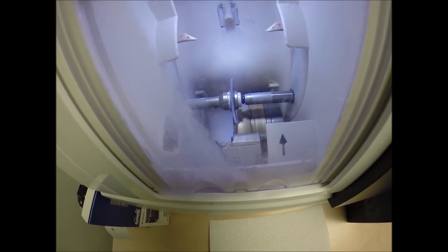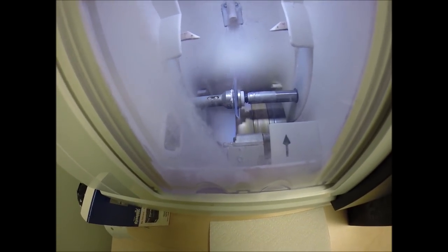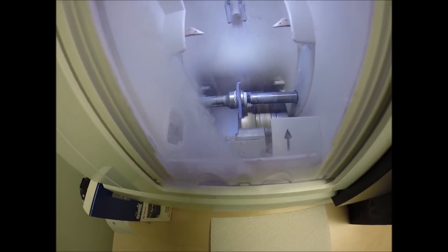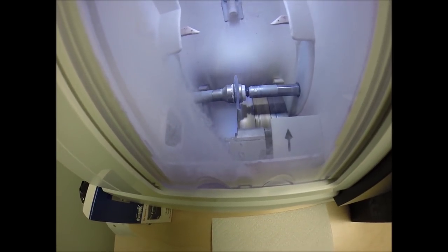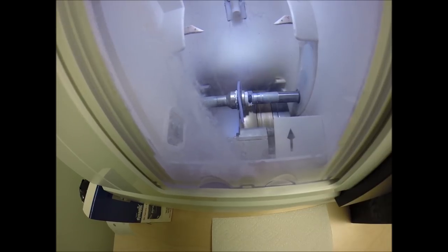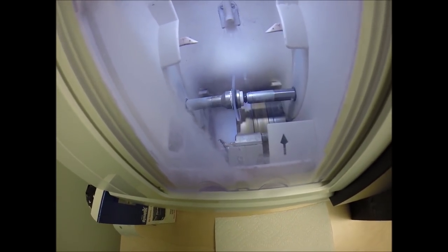Speaking of protection, these lenses also have 100% UVA and UVB protection built into the lens. Because we know what the sun's harmful ultraviolet rays can do to your skin there in Cleveland, Tennessee. This is permanent and never needs to be reapplied, unlike the lotions, creams, and sprays that need to be reapplied when you're in direct exposure to the sun.